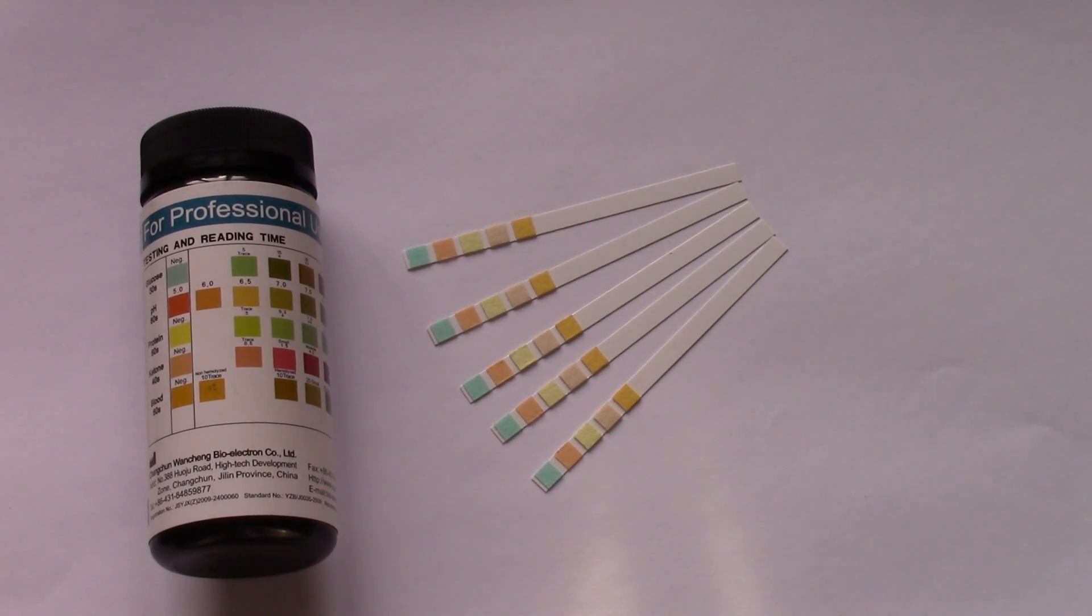Once that change has occurred from moisture, you can't dry them out again and reuse them, they've gone. You've got to buy fresh test strips, so just buy the quantity that you're going to use over a three-month period. Don't be afraid to use them frequently because you're not saving yourself any money by extending their use anywhere beyond three months after you've popped that seal.